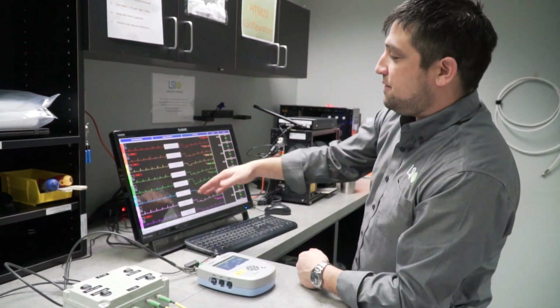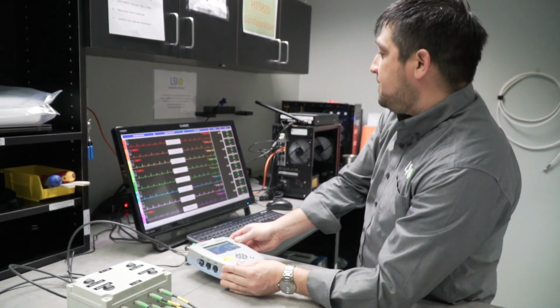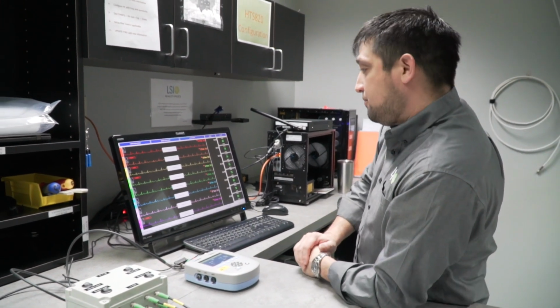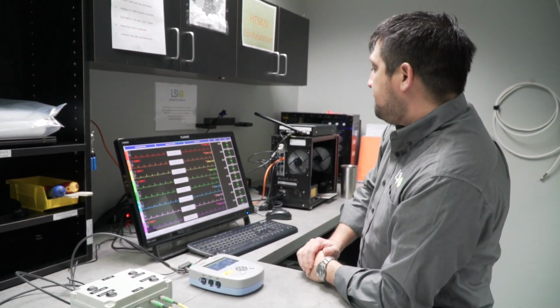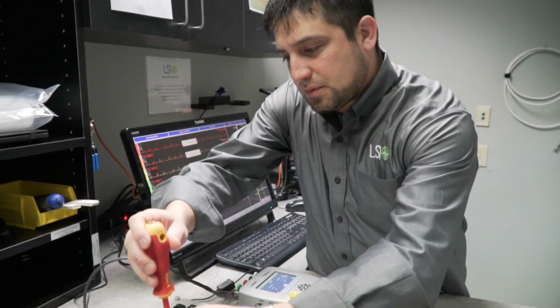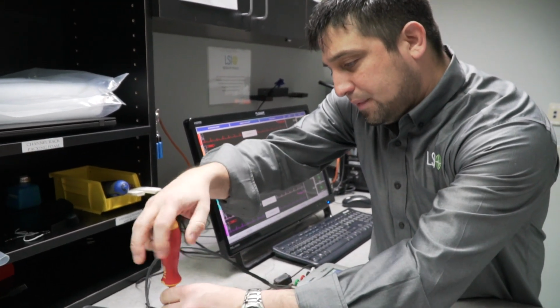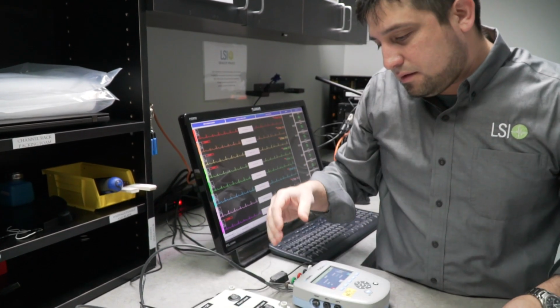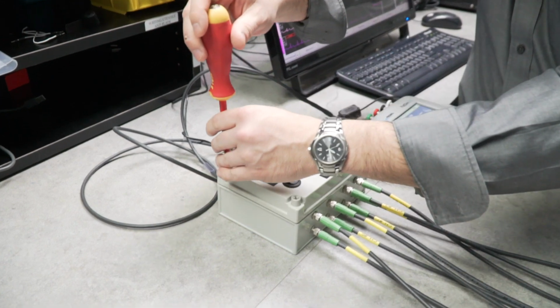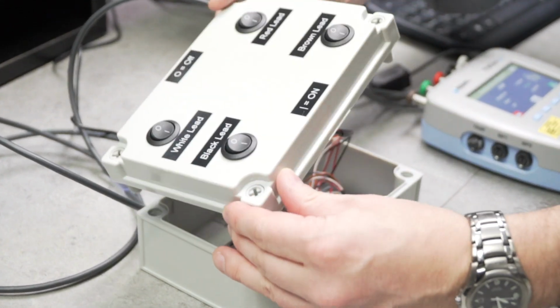Now, in addition to testing all of our transmitters at 80 beats a minute, we can also test every single one of them for that lead fault detection, which we're required to do. So that's the result of our project. All right, I'm going to go ahead and open up the simulator splitter so you can see the inside. This was the design. And the original scope from my shareholder was just to develop the simulator splitter.